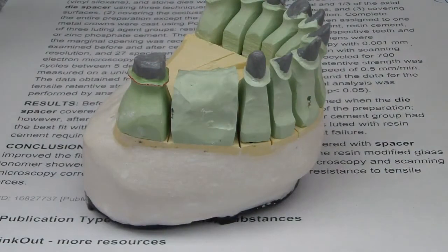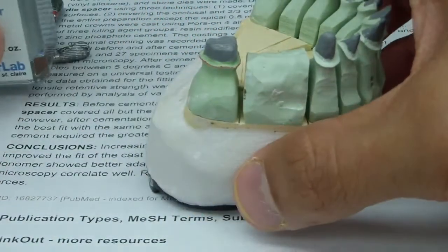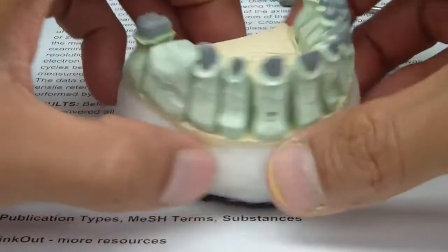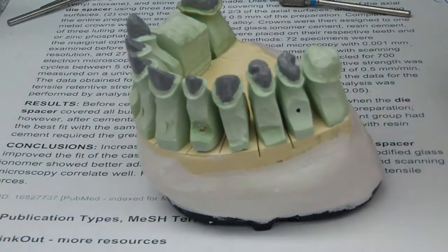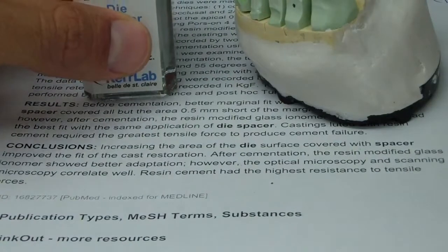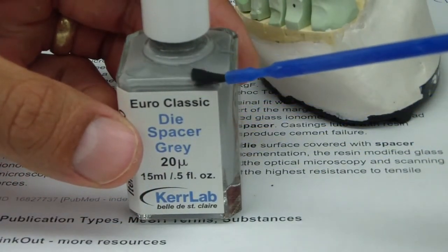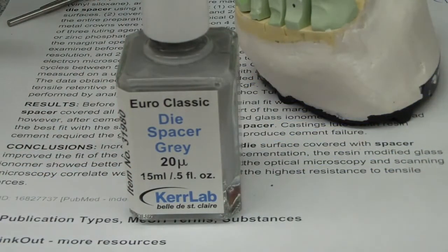As for thickness, studies have shown from 25 microns to 60 microns — from one coat to two coats. So here's 20 microns: just go with whatever you've been taught. I'm going with 20 microns, one coat. There are different variations on a theme, and studies show that as the volatile monomer evaporates, it changes the thickness.